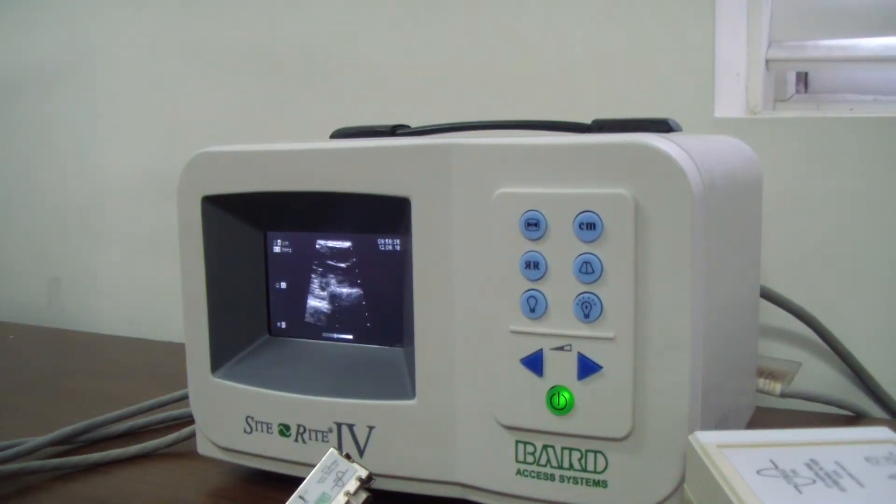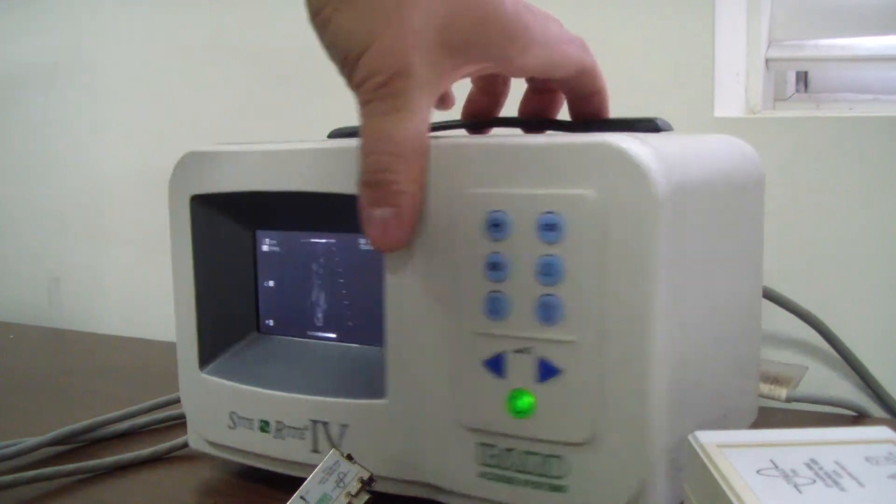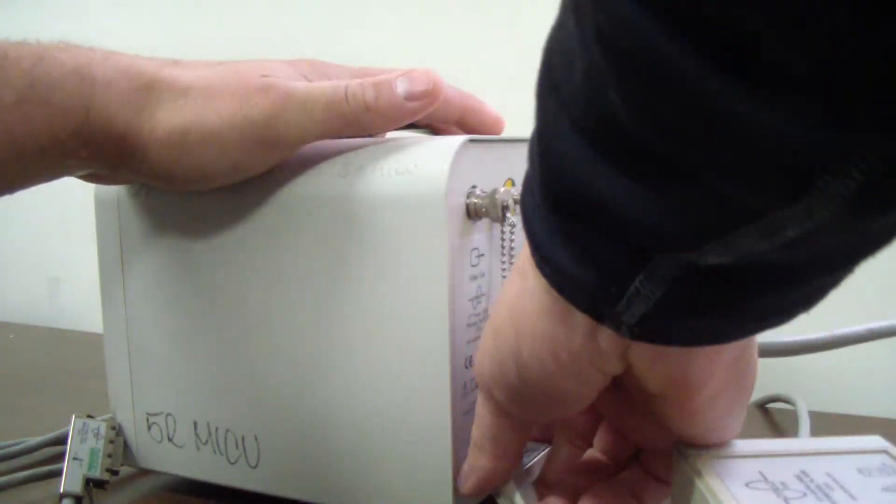You can see here the scan seems to produce a decent image. We'll go ahead and swap out the scan heads.